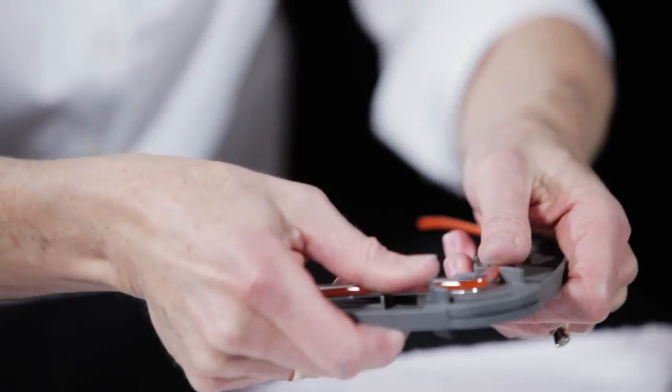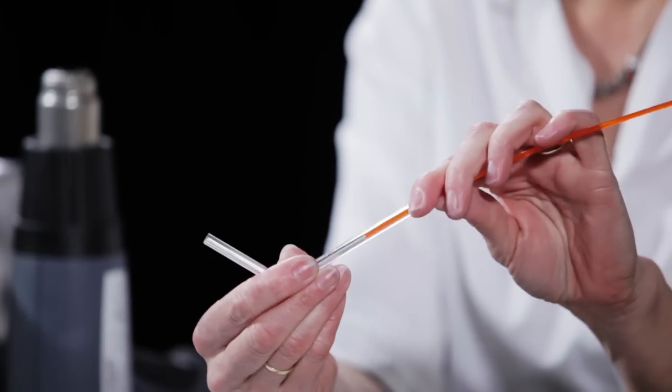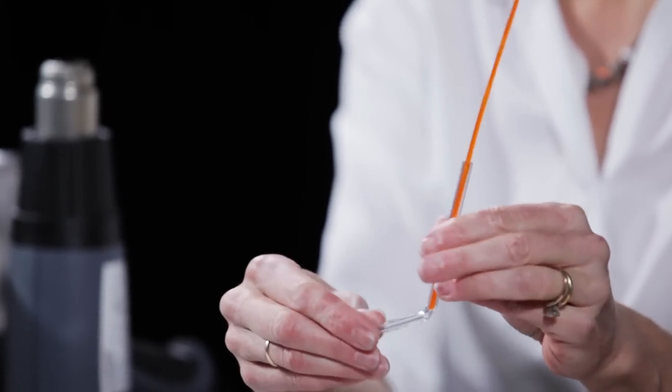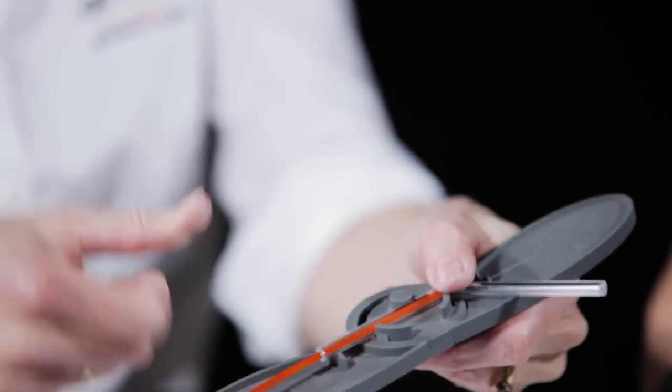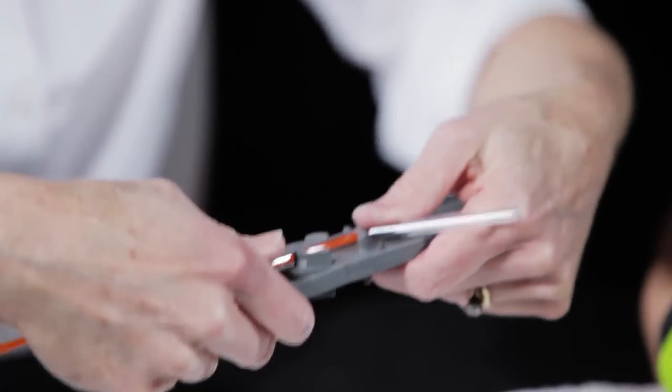Hold down firmly with the thumbs on each side and bend inward to an angle of about 70 to 90 degrees. Remove the orange nylon rod and reinsert for the second bend back to parallel.